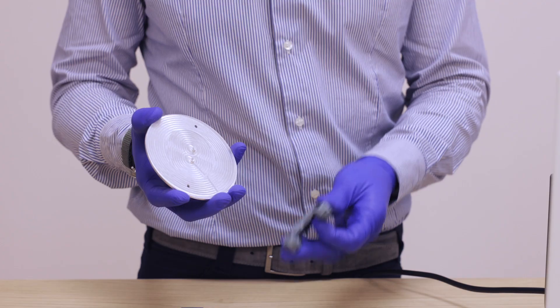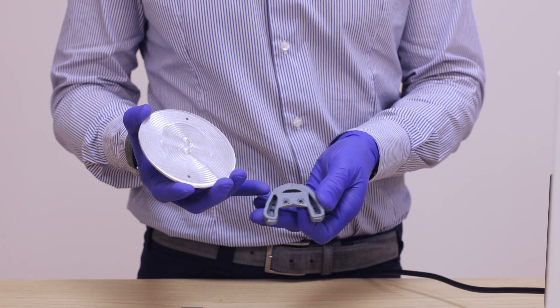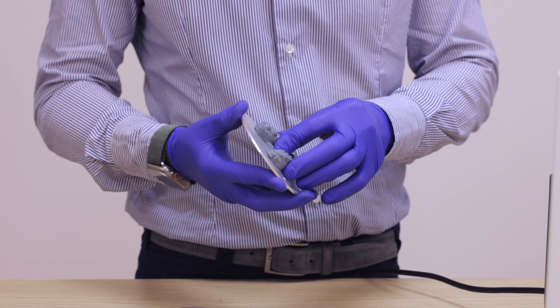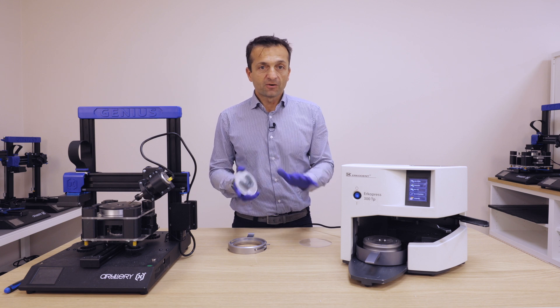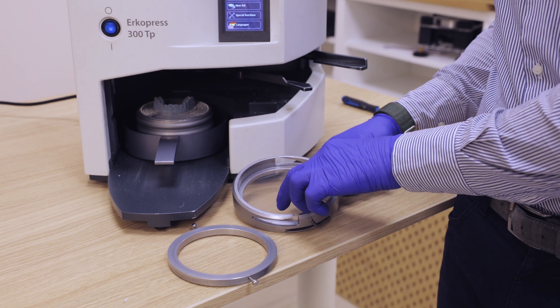Under the model you have these two holes, and you fix it to the plate before thermoforming. This way you are sure that the position from the thermoformer to the trimmer is perfect. Now we put the sheet for thermoforming.